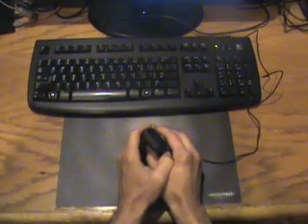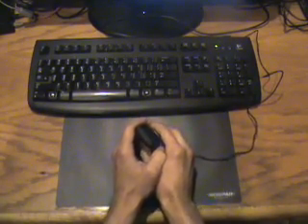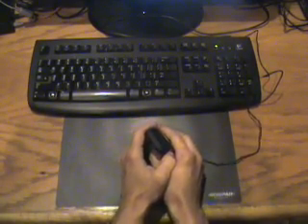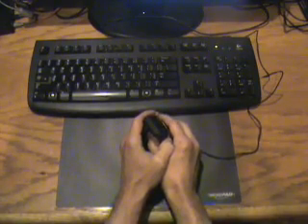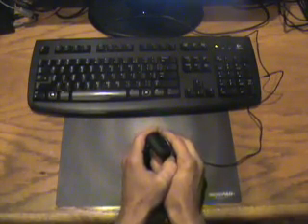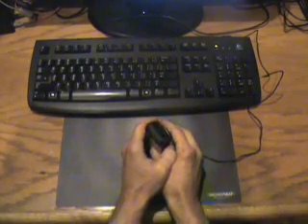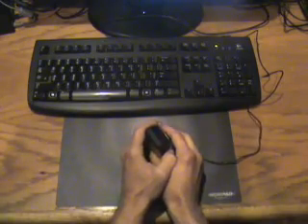Operating the Precision mouse with two hands was found to be very effective for people with rheumatoid arthritis and other inflammatory problems. Operating with two hands provides extra stability and reduces the amount of stress on any one wrist.